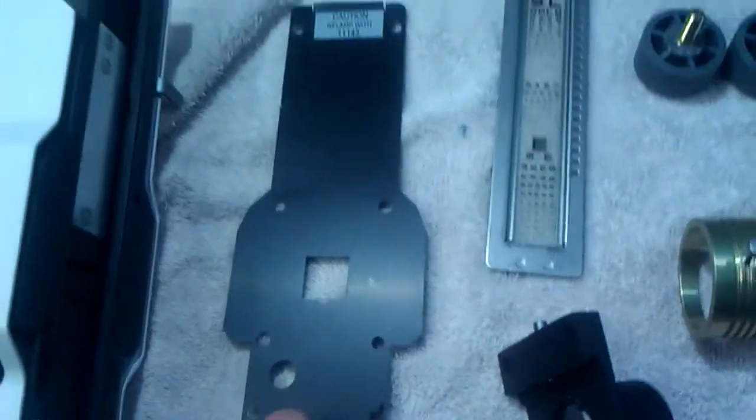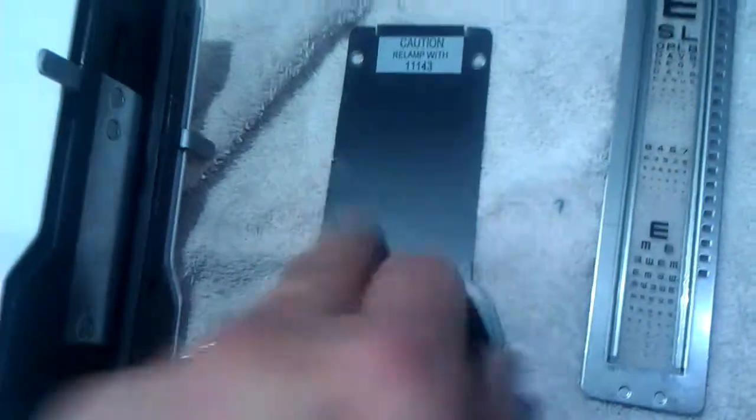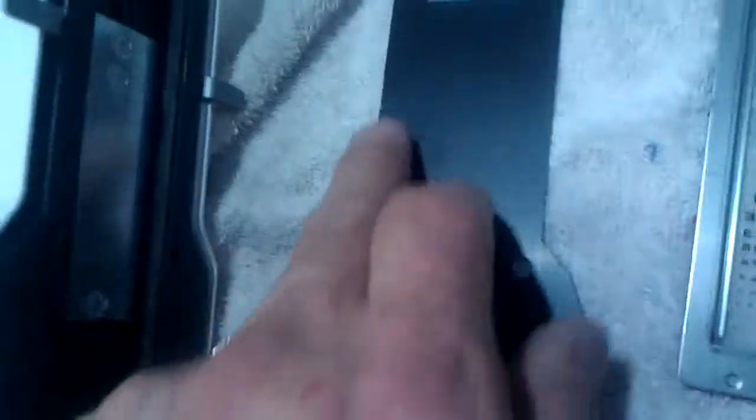The plate mask here was also bent where these tabs were, so we've straightened that up. The optics were dirty, so we cleaned up the optics.